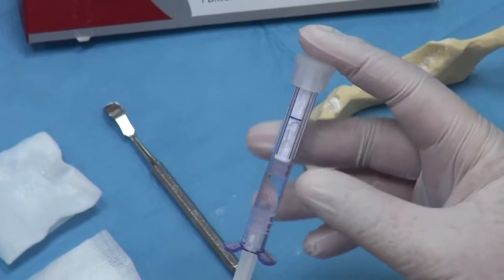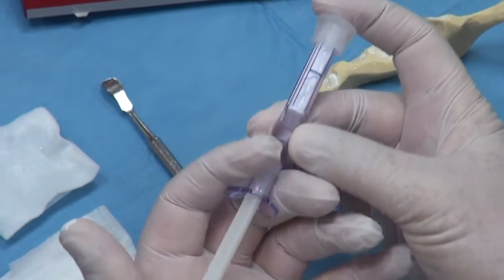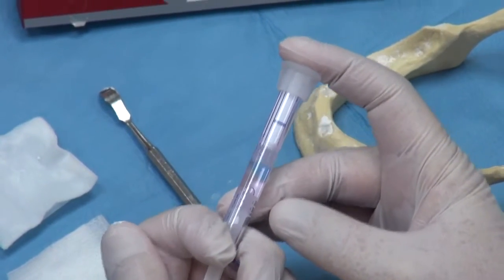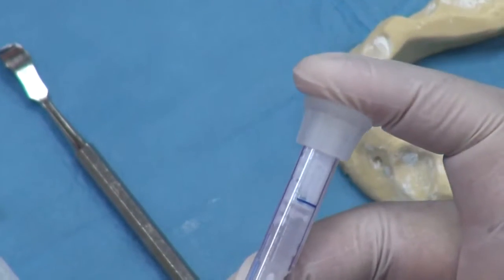Then, placing our finger over the cap, we take our other hand and push the shaft towards the blue line in a continuous action until we feel maximum resistance.